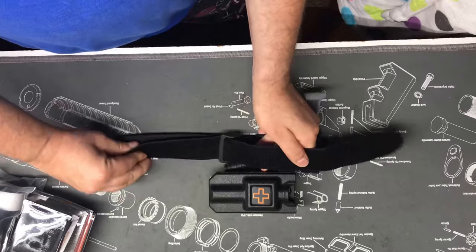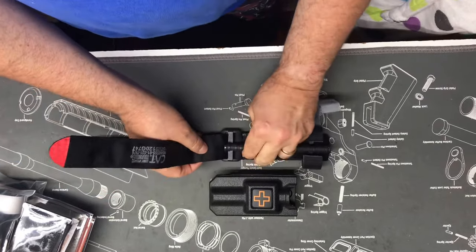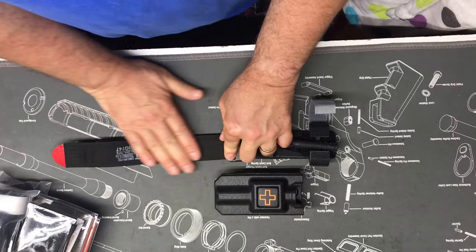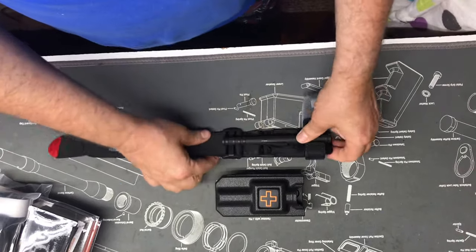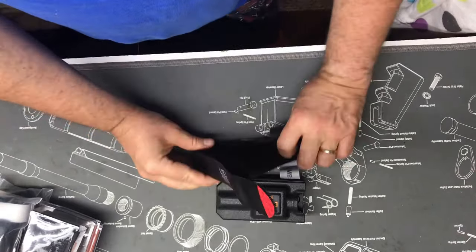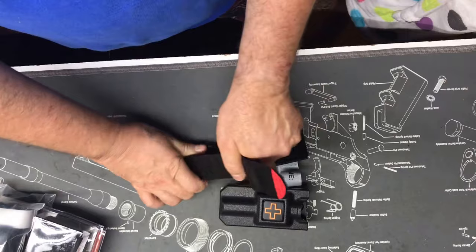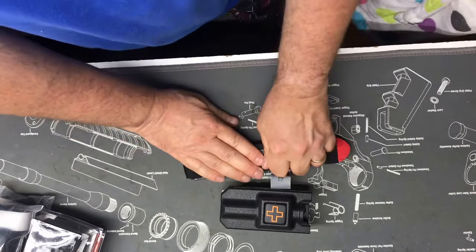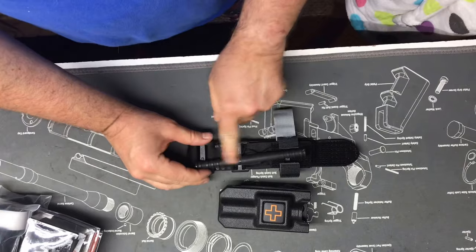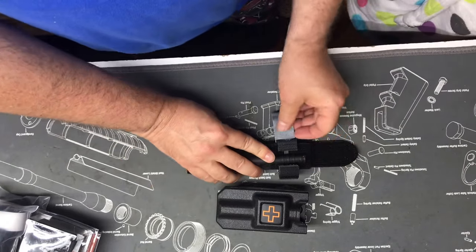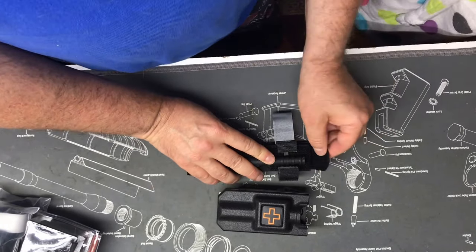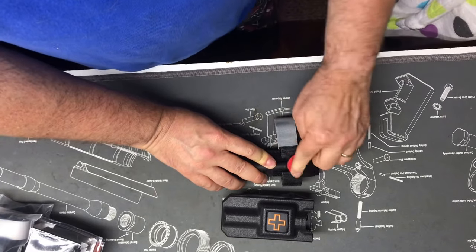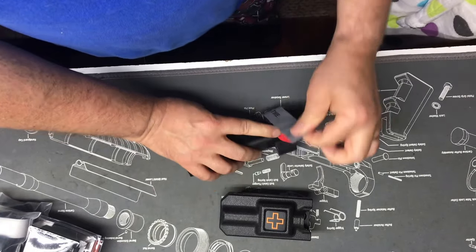Once I have that measurement right there, it comes looped all the way through. I'm going to flatten this strap out like that. Now I can fold the strap up underneath like that, put the windlass in the middle, then I'll take the rest of the remaining part of the flap and flap it over right there.